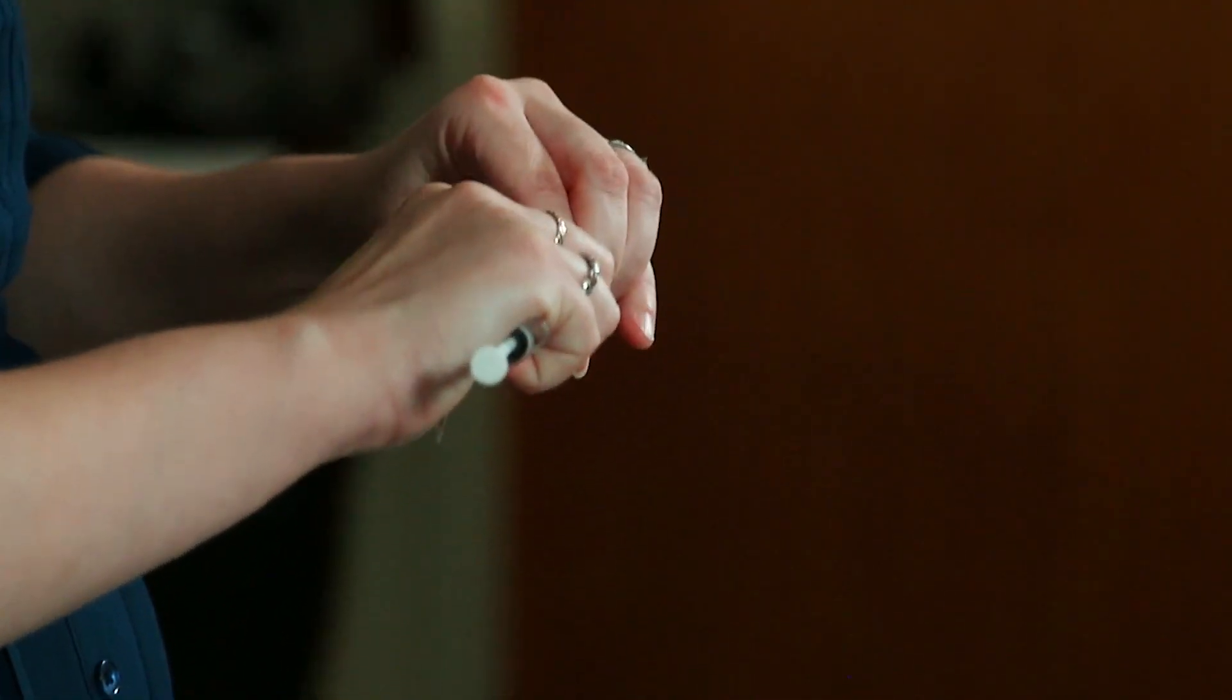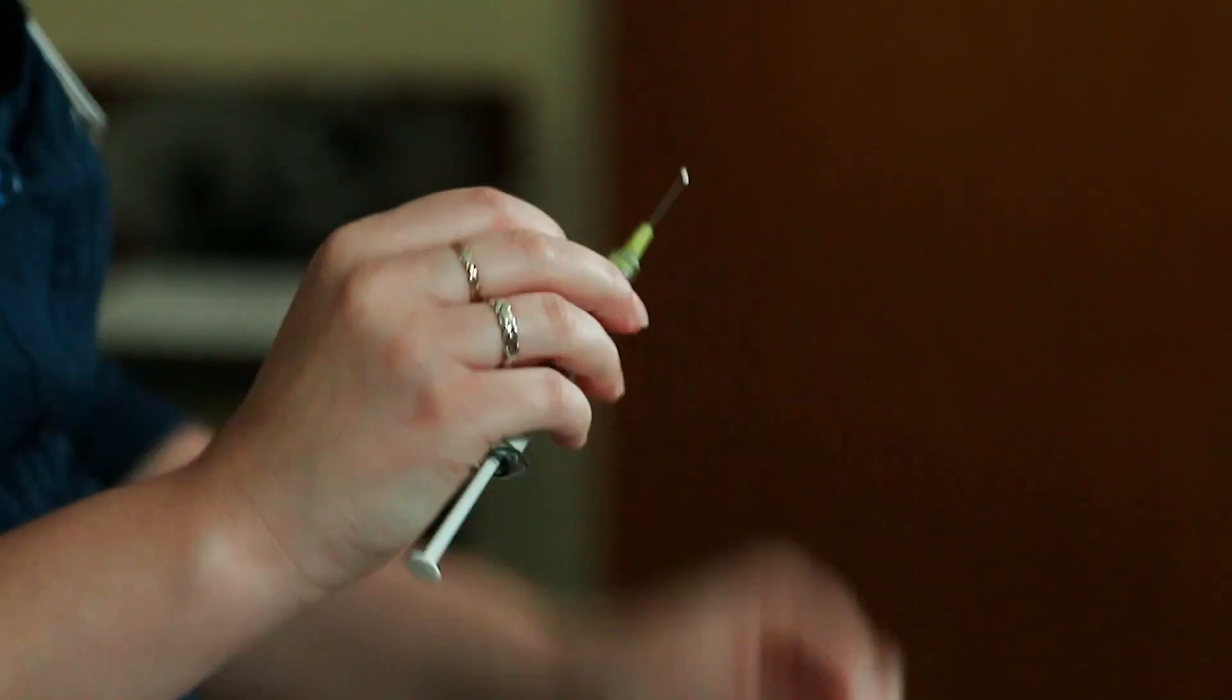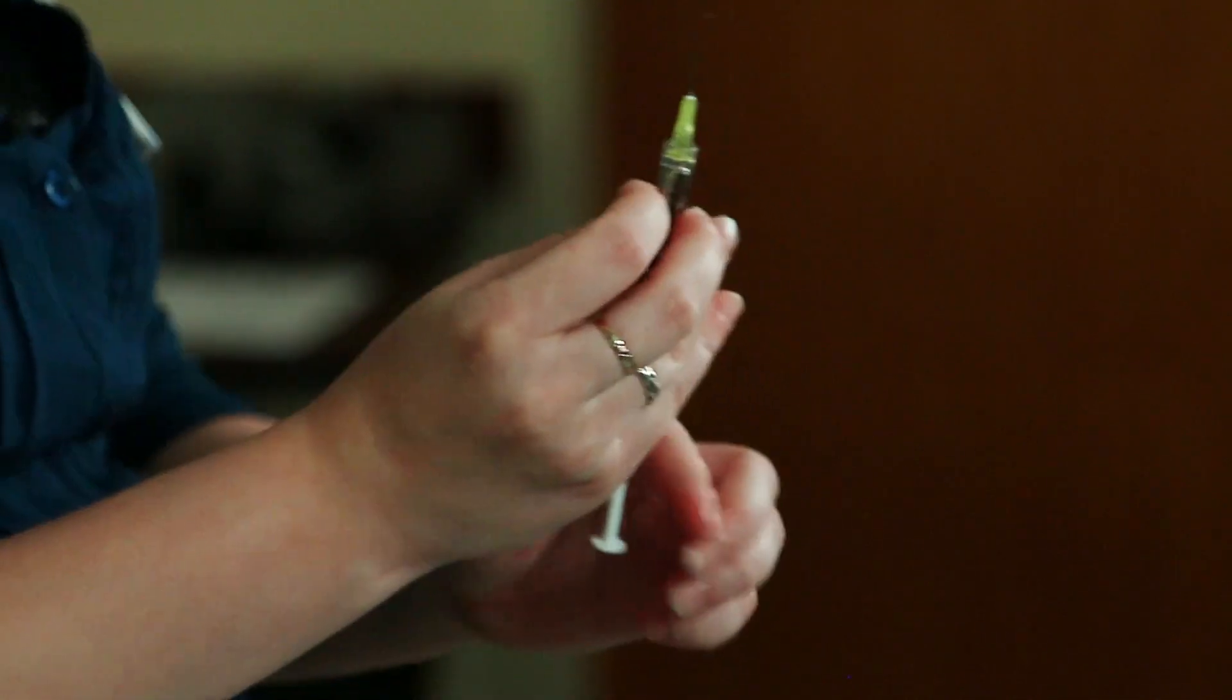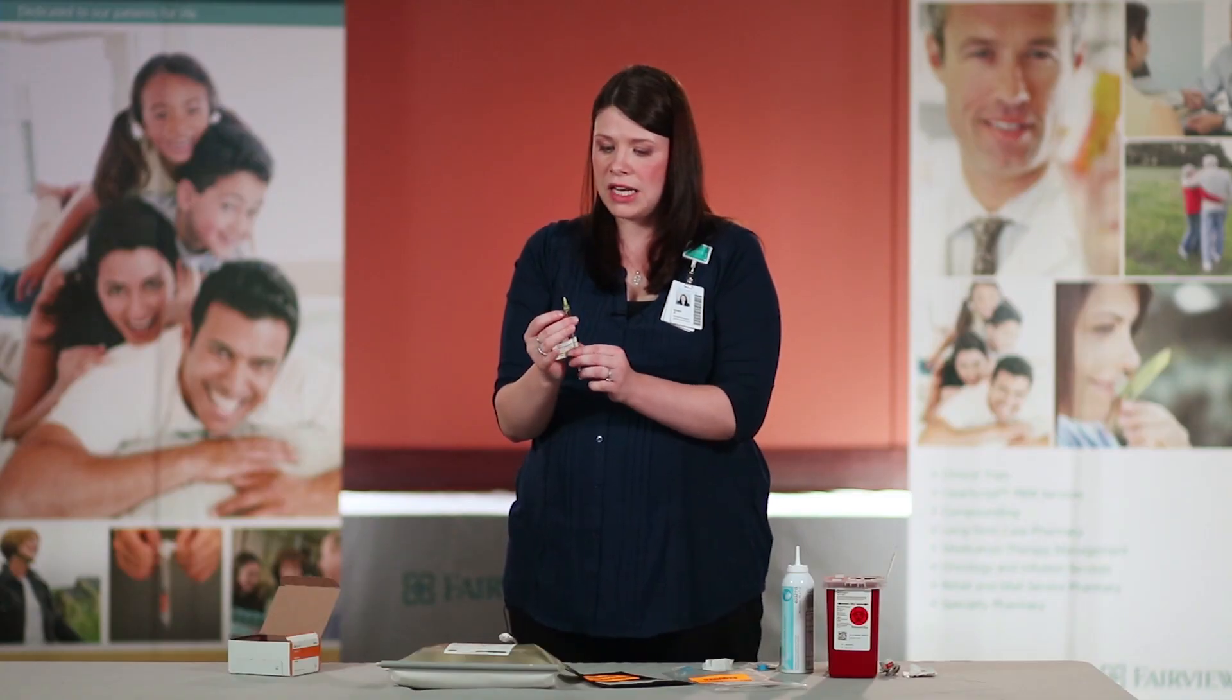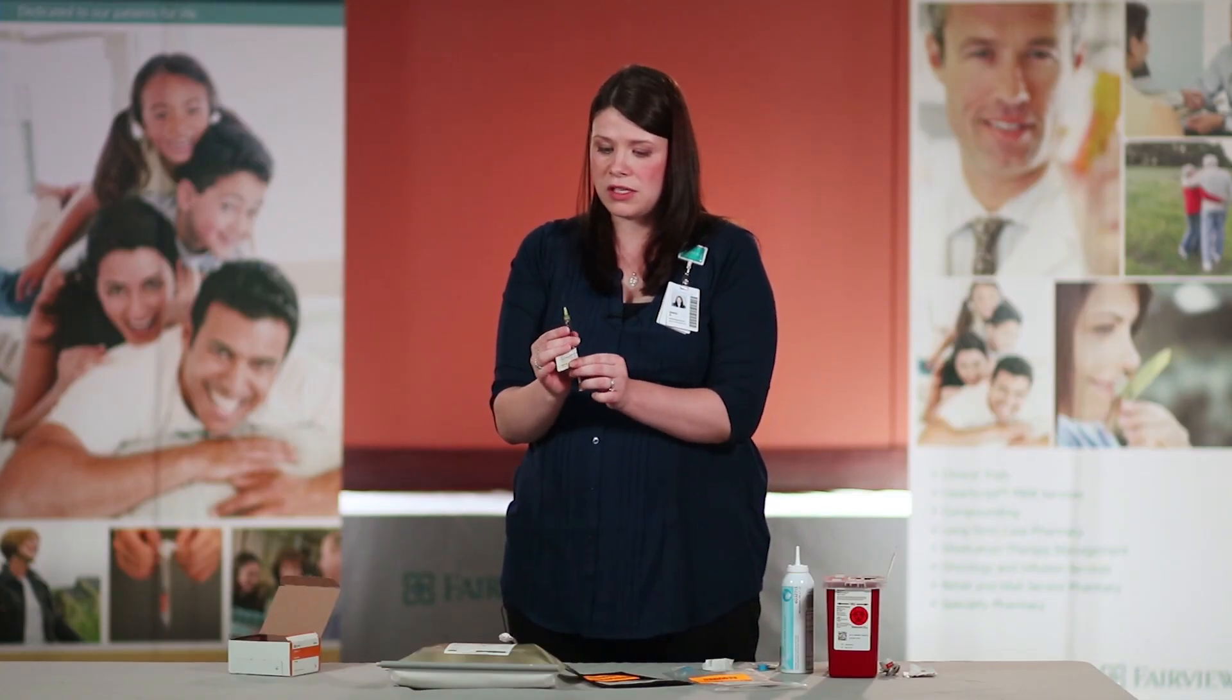To remove the needle, pull directly off. Do not twist, and once the cap is off the needle, ensure that you do not touch the tip of the needle.